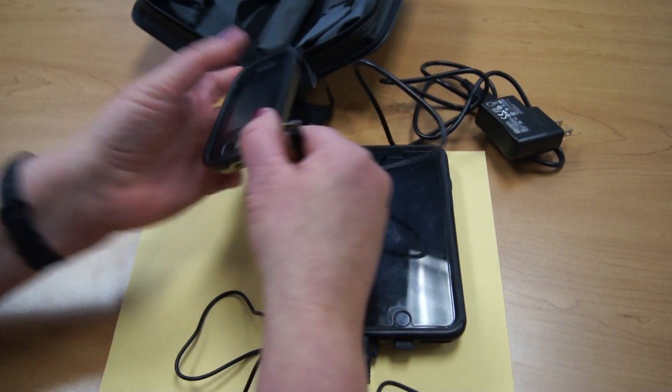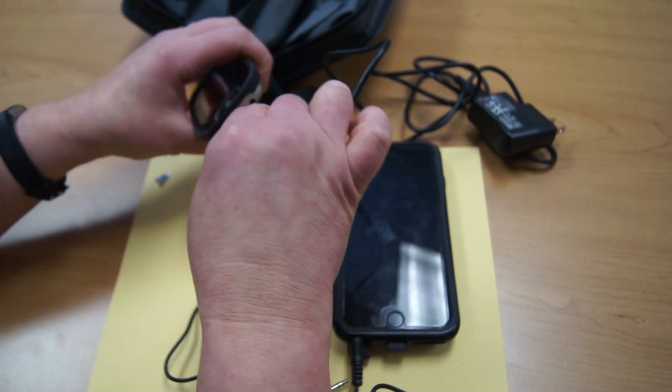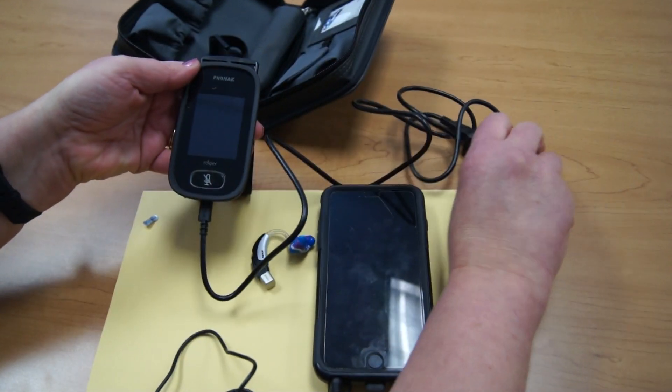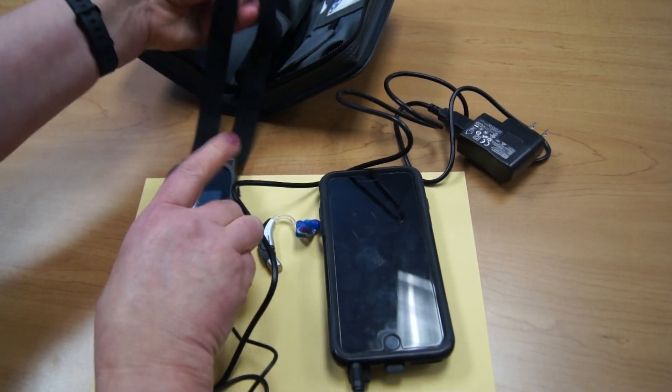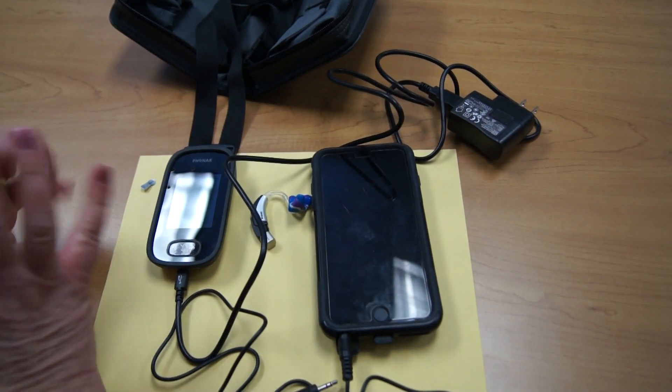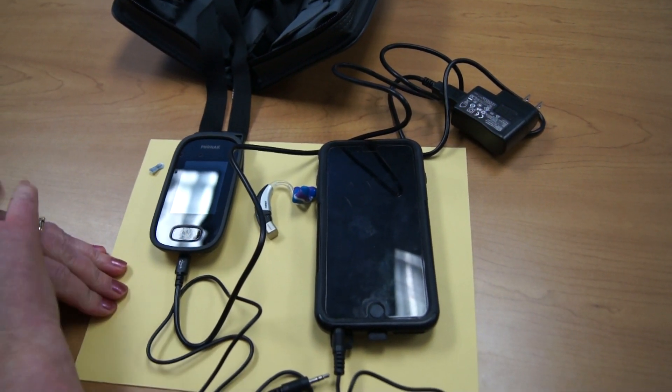You'll then want to charge the device at the end of the day, plug it in here, and then into the outlet. Make sure that you store this away from any sunlight or anything so it does not get wet when you're not in use.